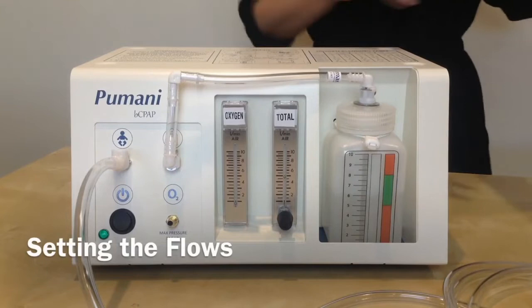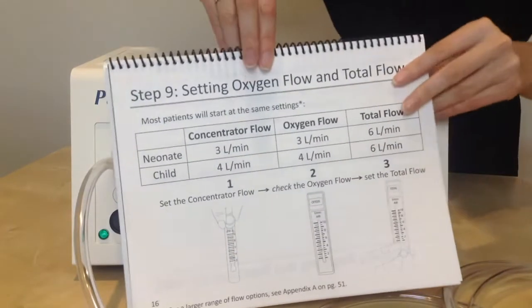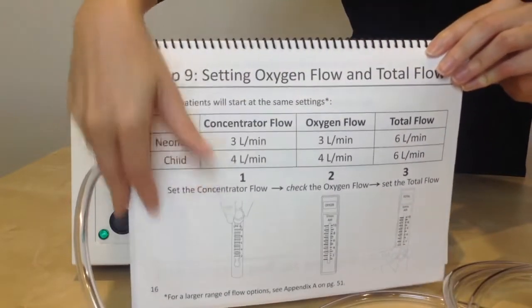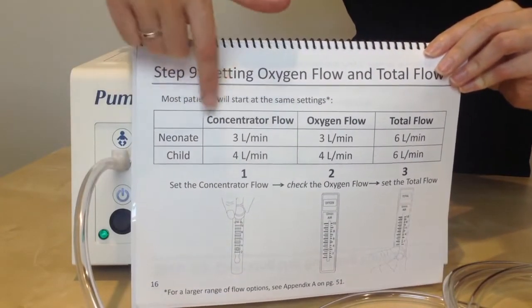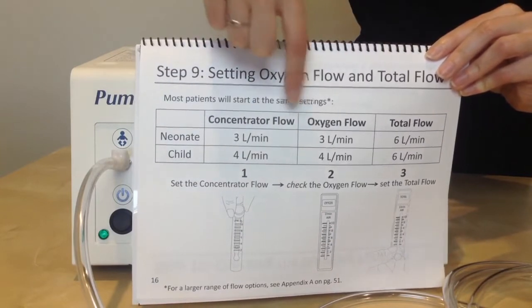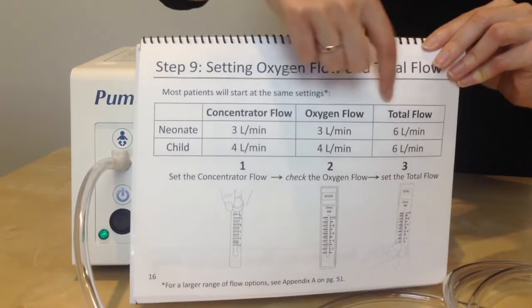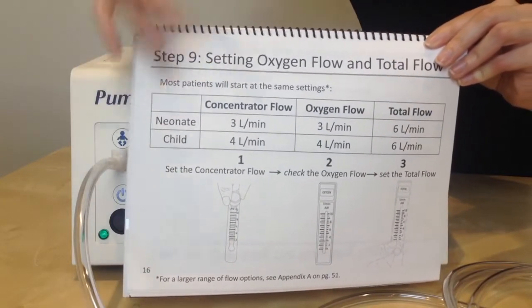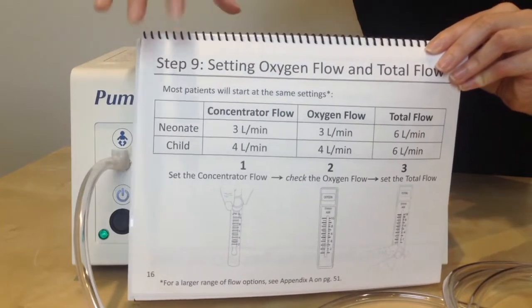To set the total flow and the oxygen flow, you will want to look at page 16 of the manual. This shows the concentrator flow, which is the same as the oxygen flow, and the total flow for two different patients. These are typical settings for these patients, but you can always adjust them.